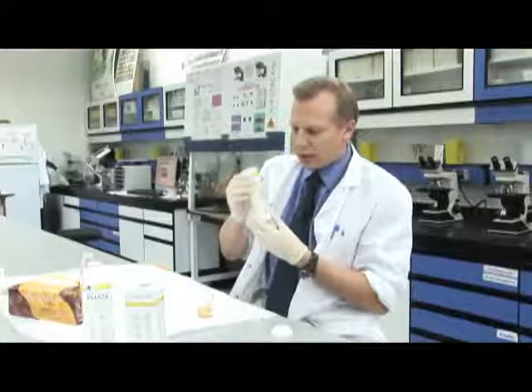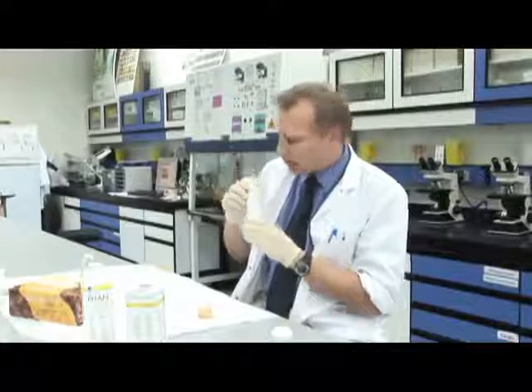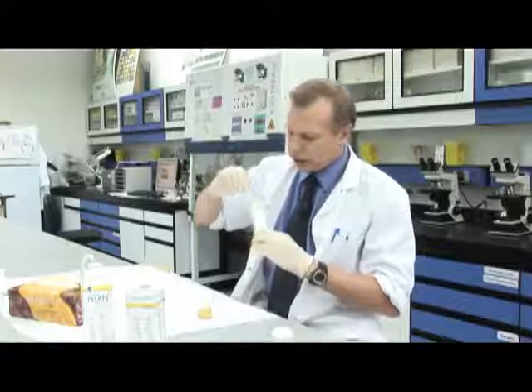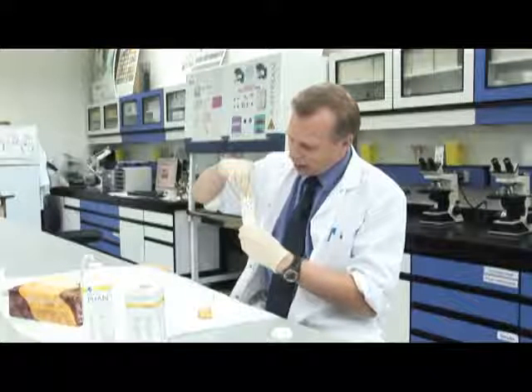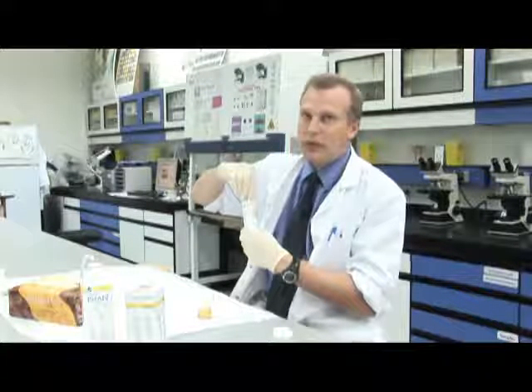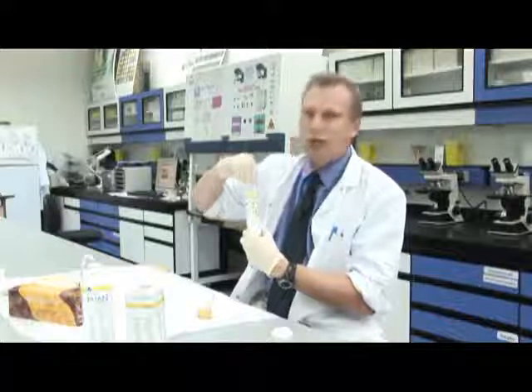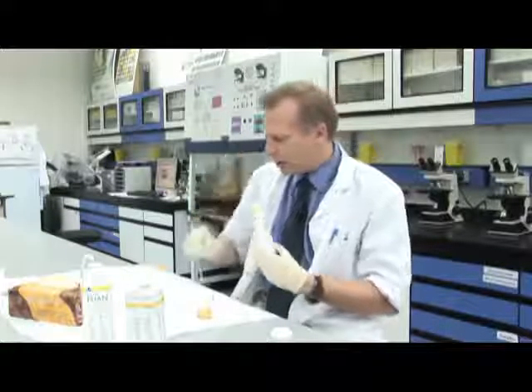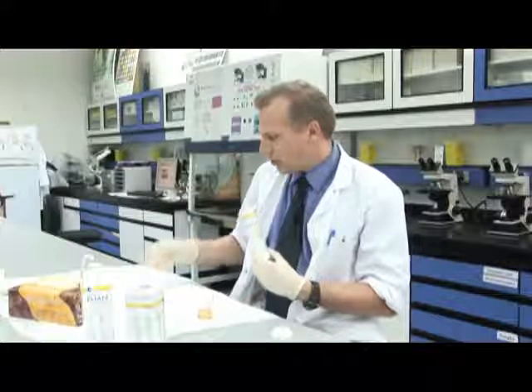Now if we look on the side of the vial or the container that these strips come in, it gives us a reference colour range. So normally if we take a non-reacted strip, it looks like this. Then the colour will change, and we hold it this way against the different colours. When we get a colour match, we can say if there's been a positive result, and it also gives us rough ranges or concentrations for the different chemicals found in urine, so we can make a diagnosis. Okay, I think that's probably had enough time now.